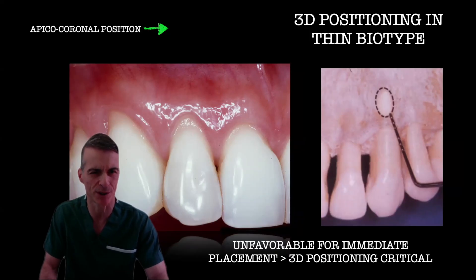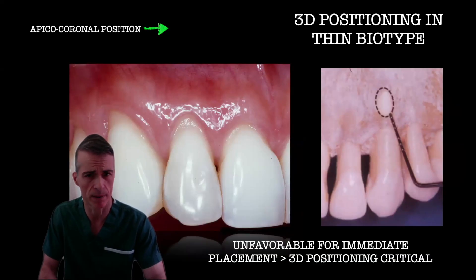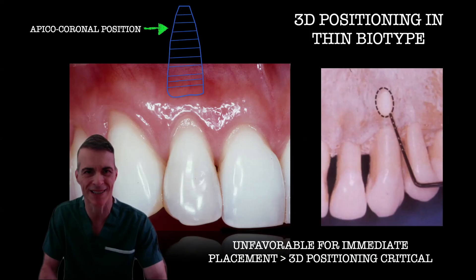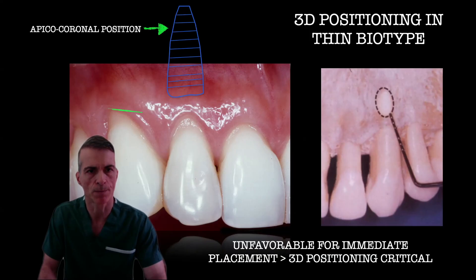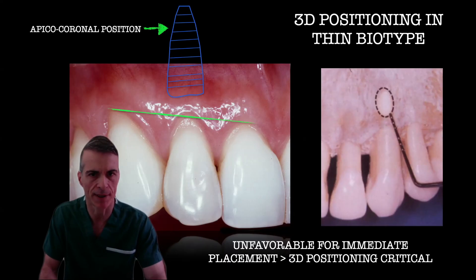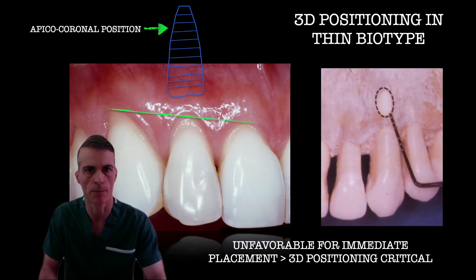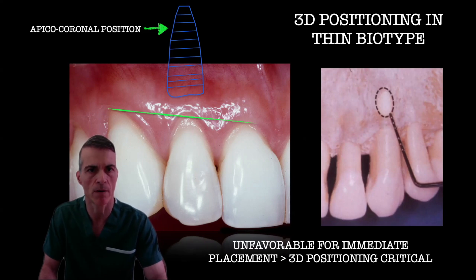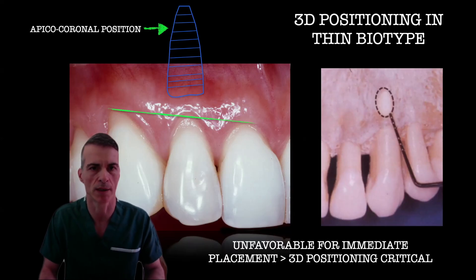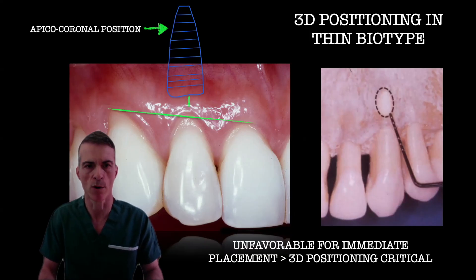3D positioning is especially important when we have buccal dehiscence and a thin biotype. Imagine placing an implant on a lateral incisor site that already presents recessions, attachment loss, and black triangles. We have to be more careful in terms of 3D positioning when we place that implant. The depth is important, as well as the bucco-lingual positioning. Always place your implants more palatal.